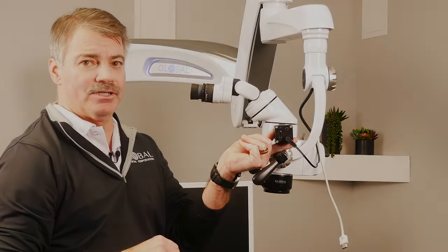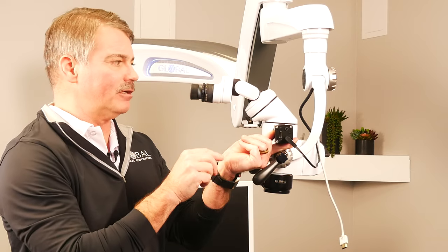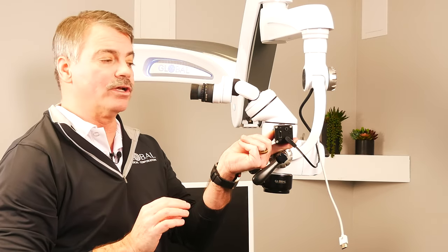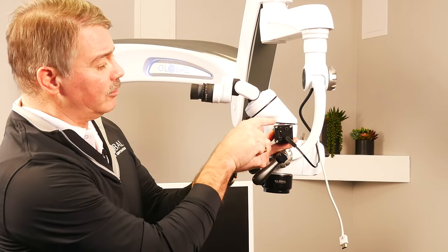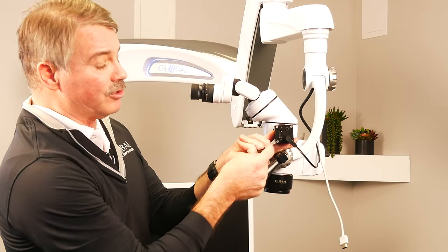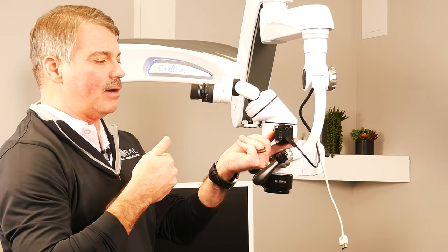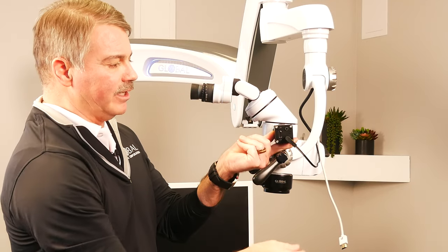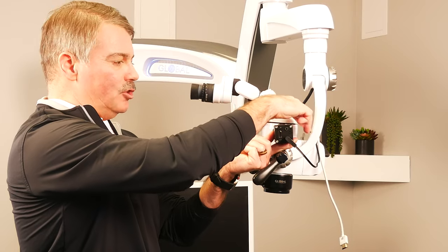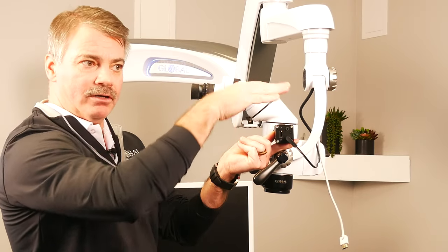On the camera system, to make sure the camera is imaging what the operator sees through the binoculars in the proper orientation, look at the cube — the HDMI cable connector should be facing directly at the operator with the power cable in the back. That can easily be achieved just by loosening this little screw and adjusting the camera to rotate.